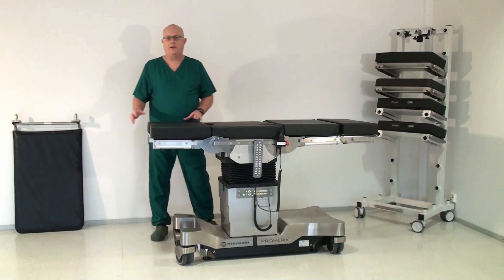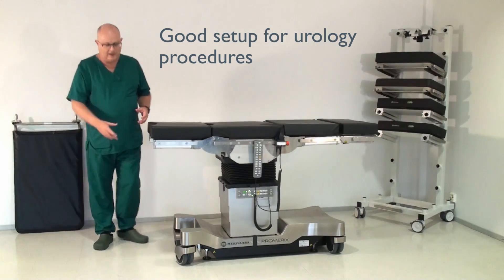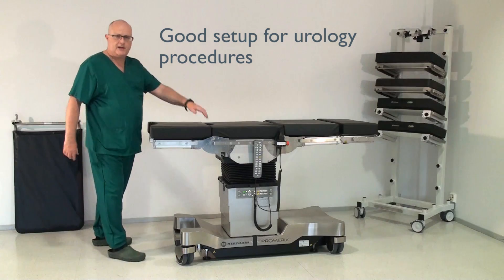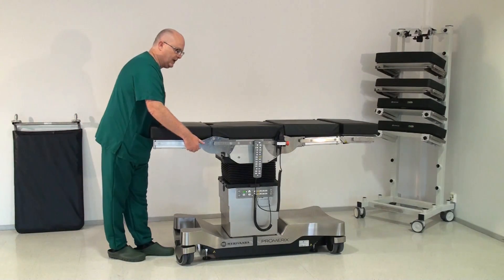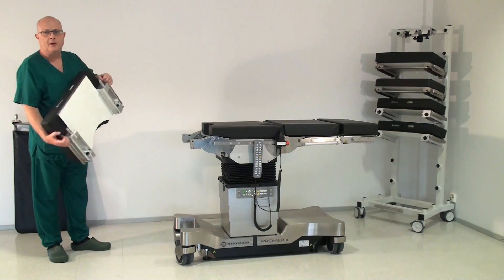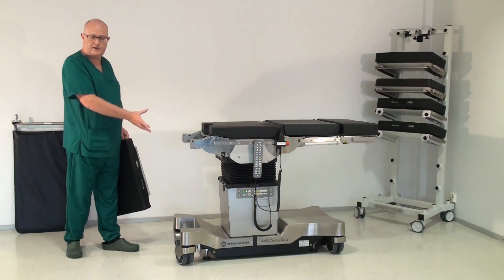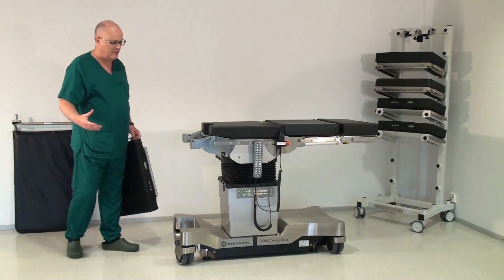This is great for something like urology because you can have the patient right off the end of the table and you've actually got access. There's also a second pelvic position where you can take this section out, put an infill section in here, and have the patient closer to the table. The idea is to make the table smaller.